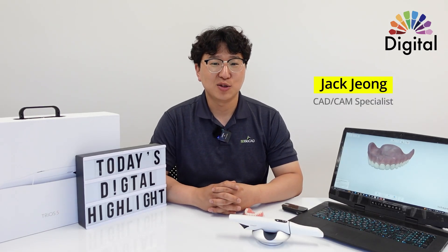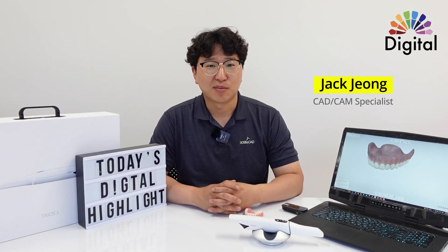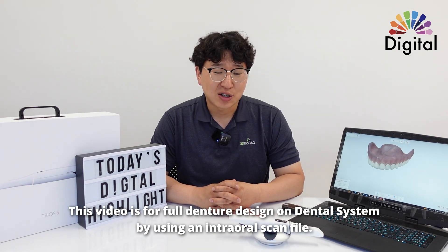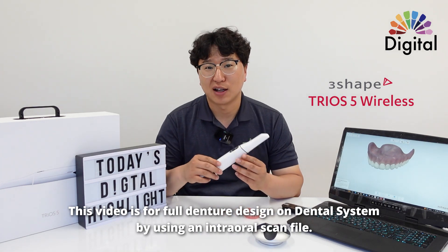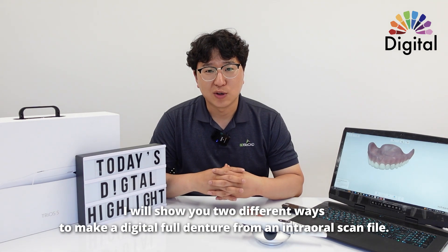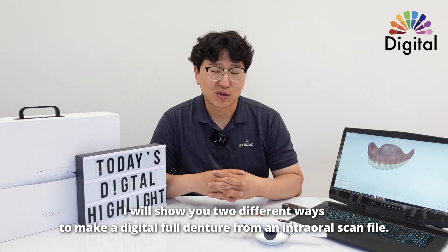Hello everyone, all technicians who use 3Shape design software — CAD designers or even doctors too. This video is for denture design, especially full denture design from an intraoral scan file, specifically for 3Shape TRIOS. I have two different ways to show you how we make the digital denture from the intraoral scan file.